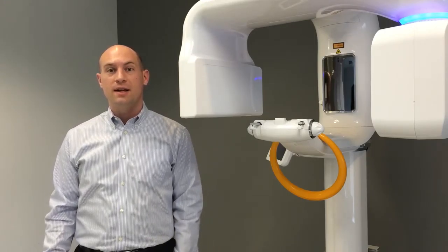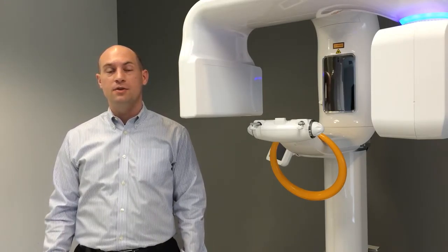I'm Wes Newsome with LED Dental. Today we're going to take an x-ray of a two-dimensional TMJ shot with the RayScan Alpha, but before we do that, let's get the computer side taken care of first.